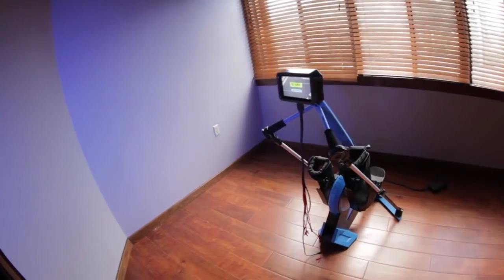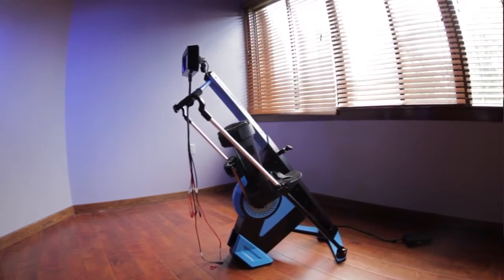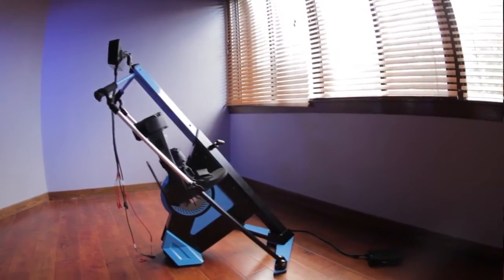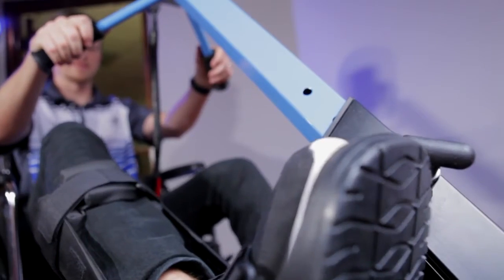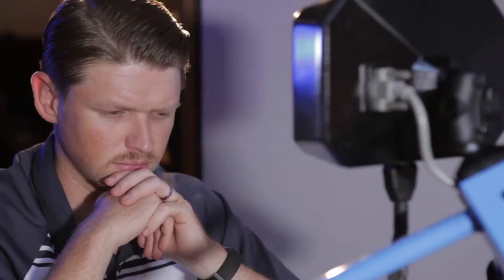The MyoCycle combines FES and smart motor control into a stationary exercise bike, a cycling platform, and it's very easy. It's very intuitive — it's just like hopping on a regular exercise bike. If you want to do more work, you increase the level and you go. It's very simple, and that's what people need in their home.